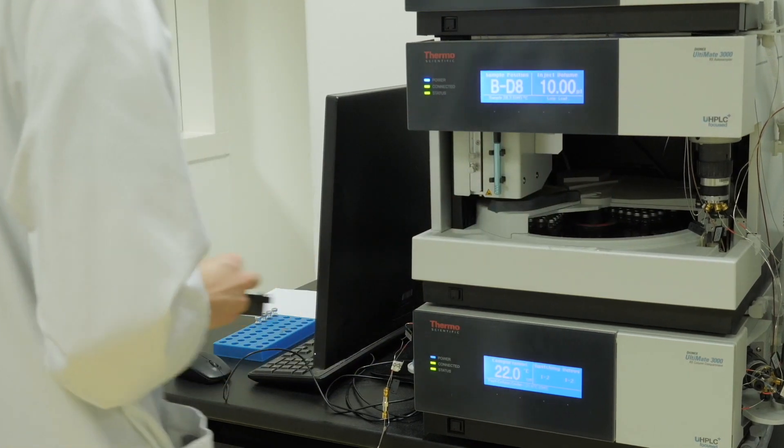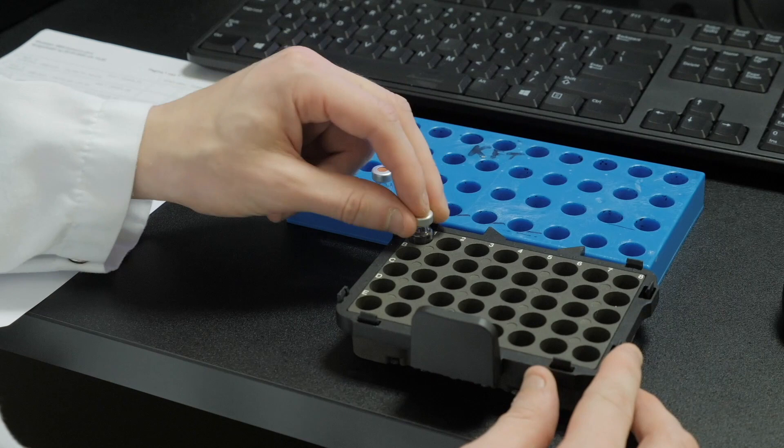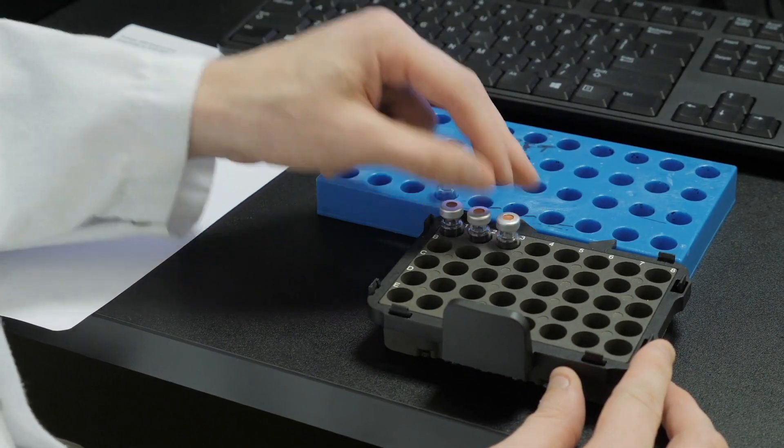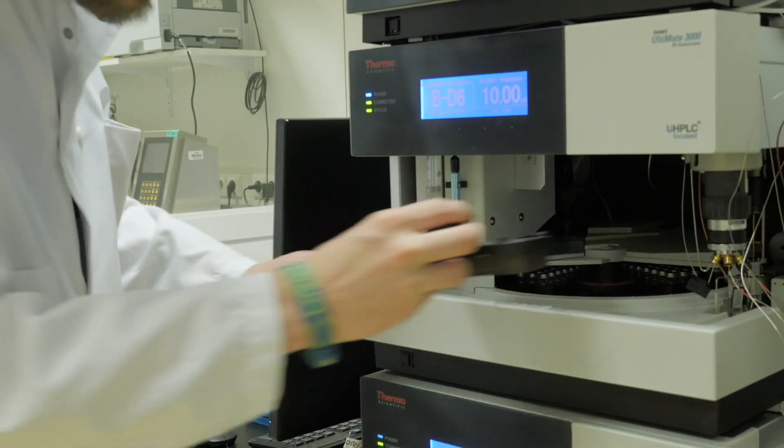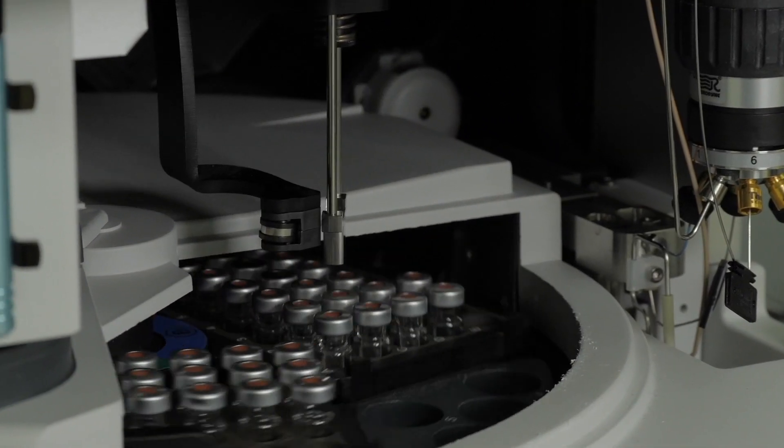The sample tubes are placed into the analyzer by the technician. Through an automated needle, fluid is taken from the sample tube and injected into the analyzer.